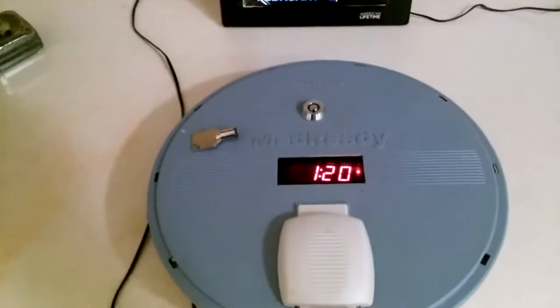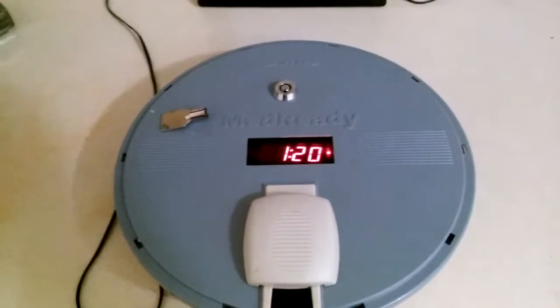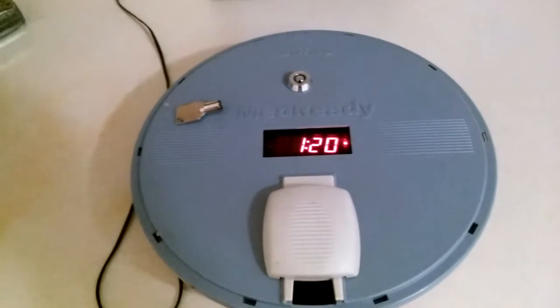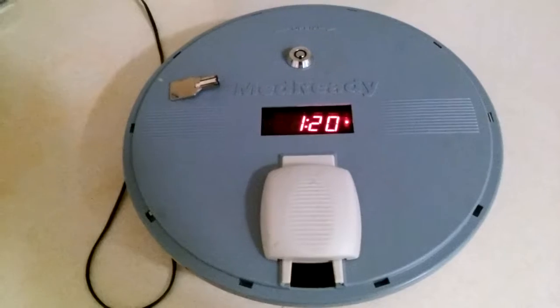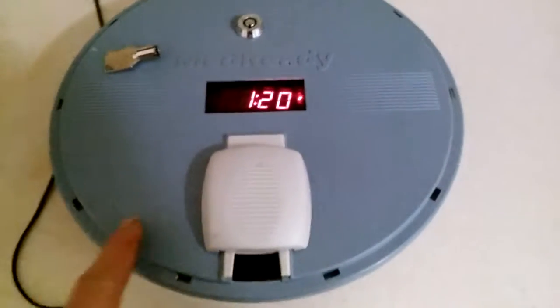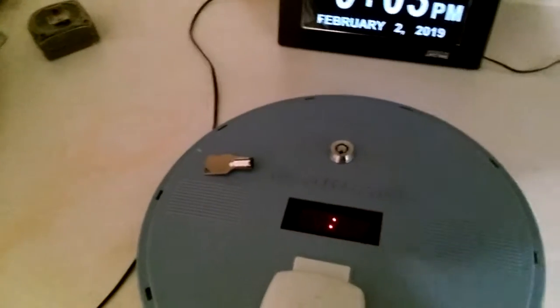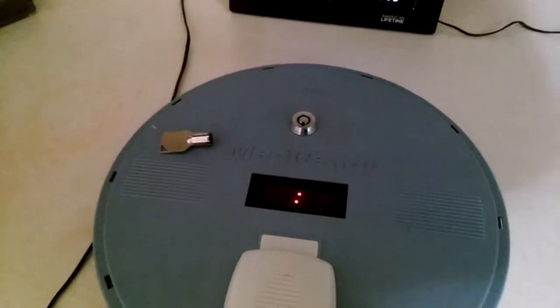These pill dispensers are about $125 new. You can find them at Walgreens or CVS might have them too. We bought a couple used on eBay. They use standard power supplies, so if you find one without a power supply, you can look in your junk drawer - a power supply for a computer router, some 12-volt power supplies will work. This is also battery backup, but when you unplug it the time doesn't display, though I believe it still keeps running.